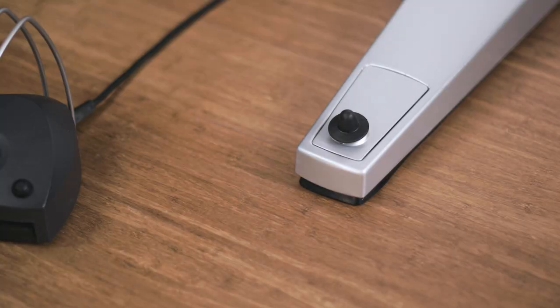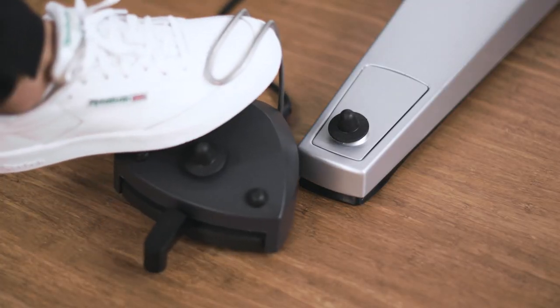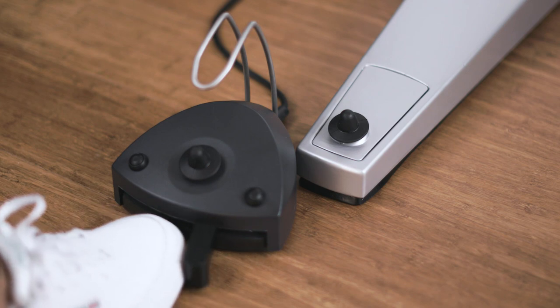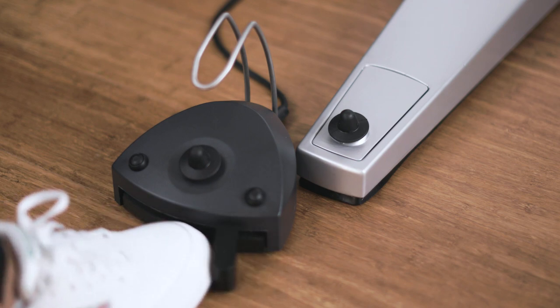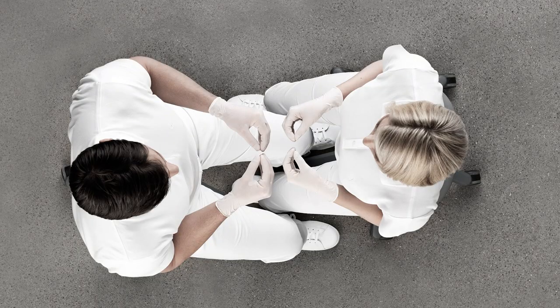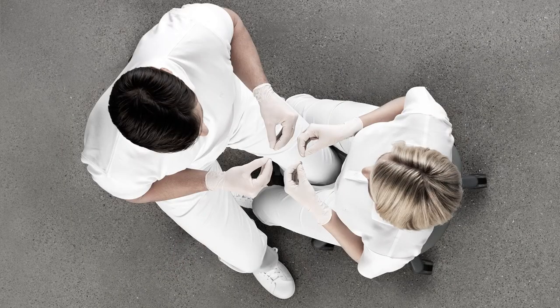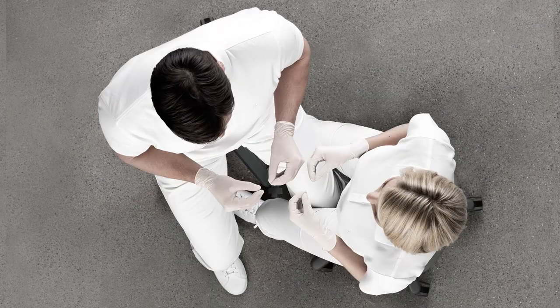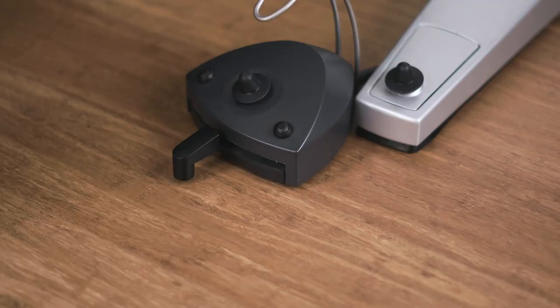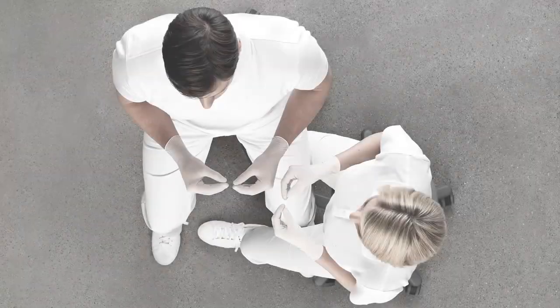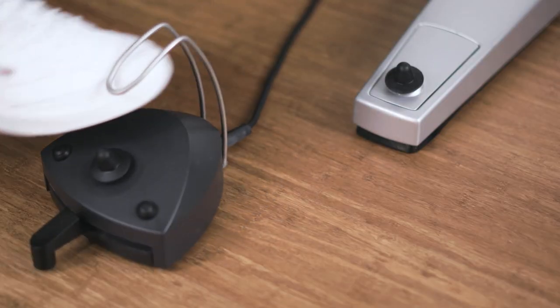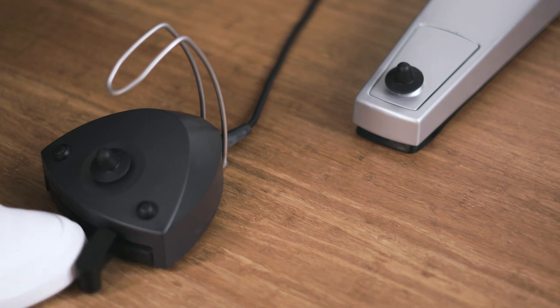Place the foot control close to the unit's supporting leg and operate it with your dominant foot when working in position 9 to 11 o'clock. In working position 12 o'clock, you may find it easier to adjust the position of the foot control.